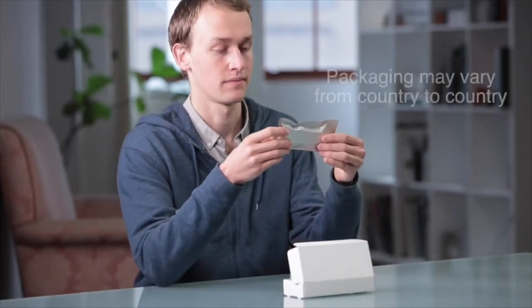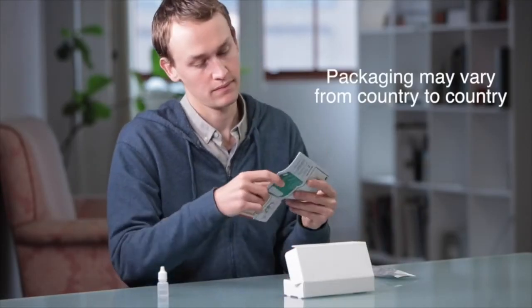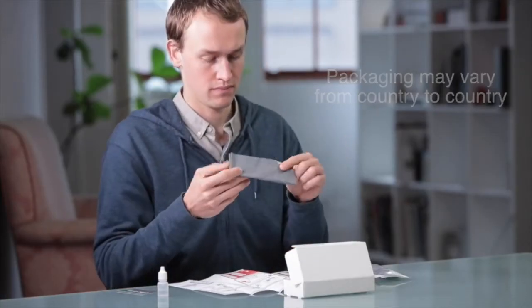Inside you will find a foil pouch containing a self-test, a bottle of test fluid, instructions, a care card, and a plastic waste bag for discreet disposal.